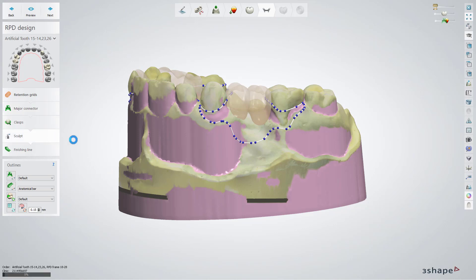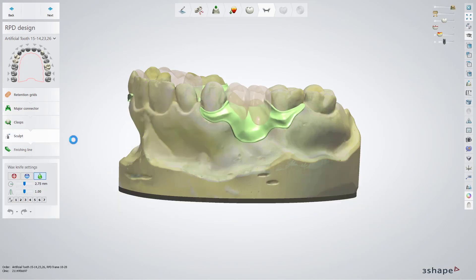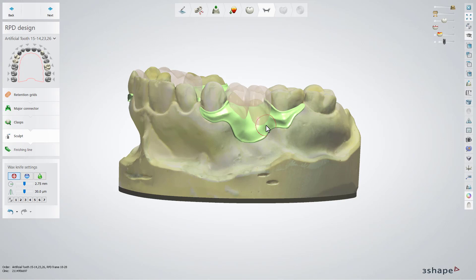Now you can go to the further sub-step and use the sculpt toolkit to add or smooth the area if needed, for example the gingiva area. Add more material around the artificial teeth to have nice looking gingiva and to keep the teeth within the design. Make sure that there will be enough retention, which makes a good bonding between all teeth and the denture base.